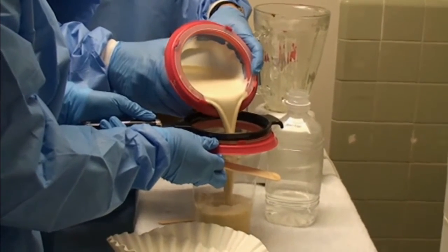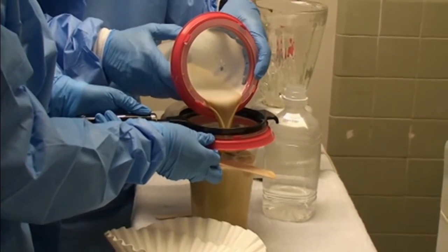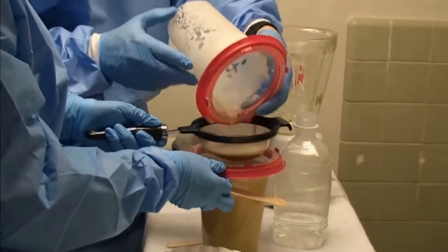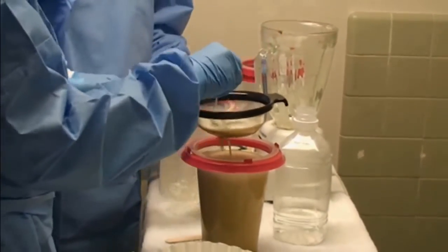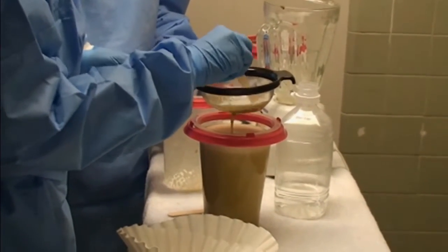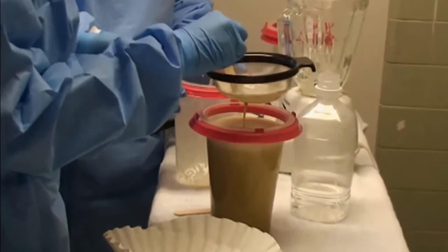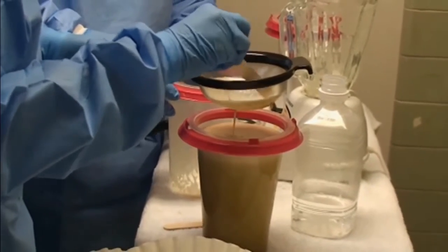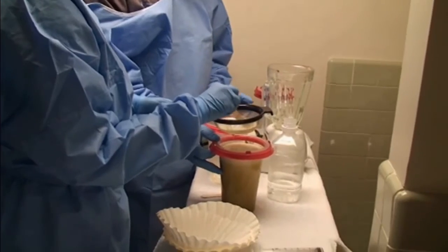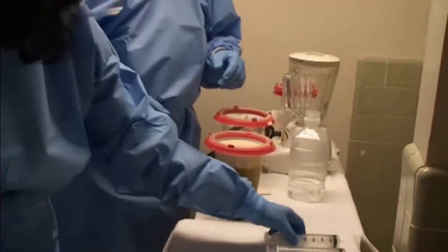We begin the second filtering process using a smaller meshed colander, which is a finer sieve. The liquid is poured through, and the spatula can again be used to help remove the liquid. Coffee filters can also be used if finer filtration is needed. The final product should appear as a blenderized liquid solution, and this brown liquid has been shown to be very rich in gut microbes.